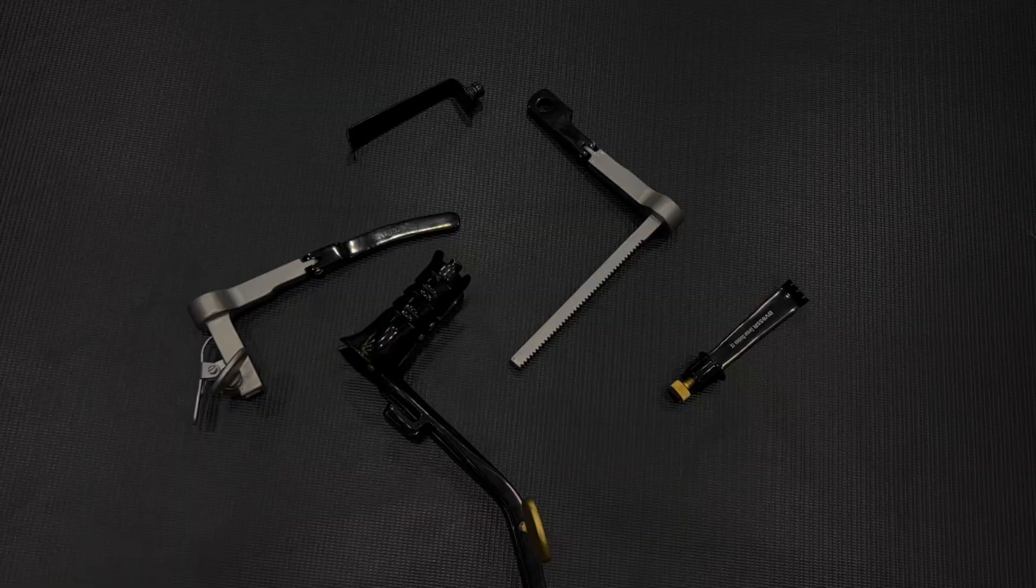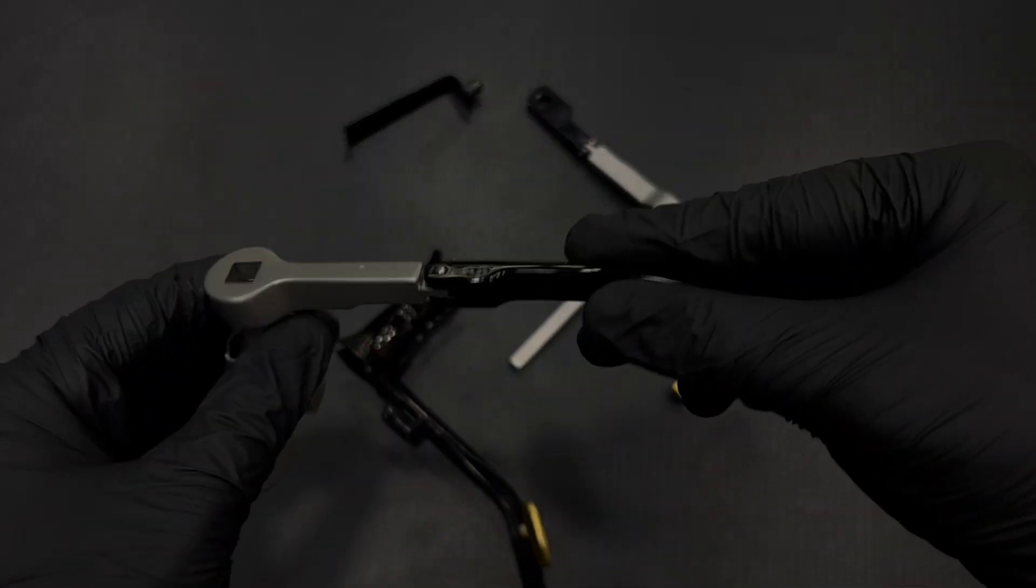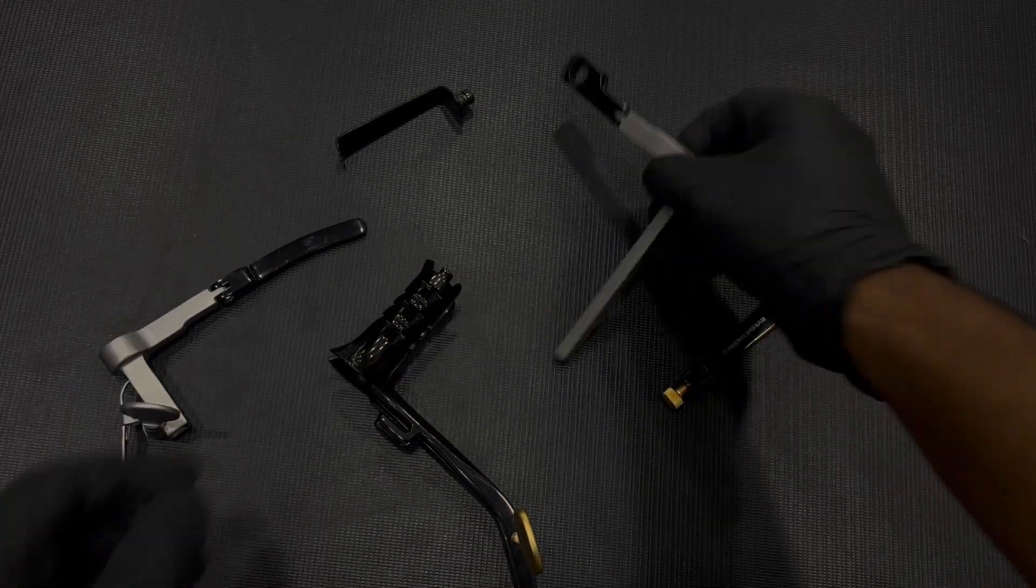Designed for a minimally invasive approach to the posterior lumbar spine, this system ensures a stable platform throughout even the most delicate procedures.